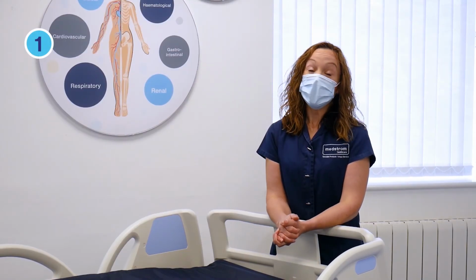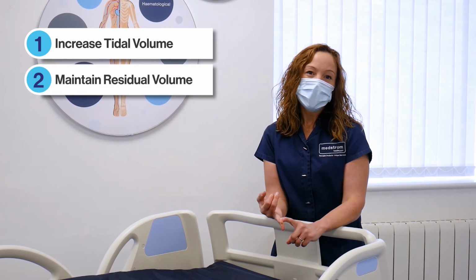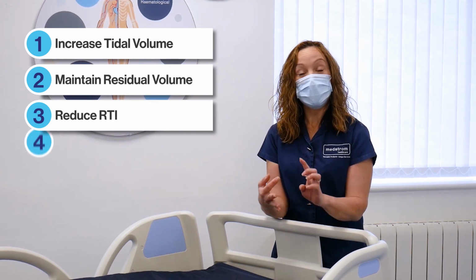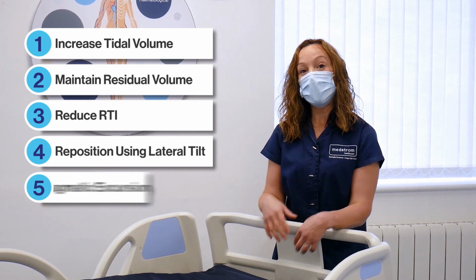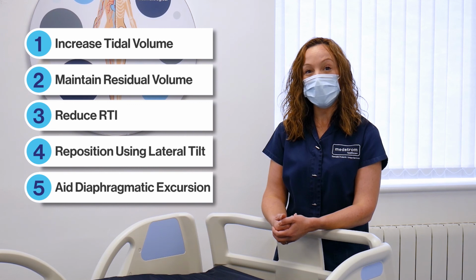So in summary, our 5 facts are to increase tidal volume, maintain residual volume, reduce respiratory tract infections by repositioning the patient using the lateral tilt, and also allow great diaphragmatic excursion by putting the patient into a full upright chair position.